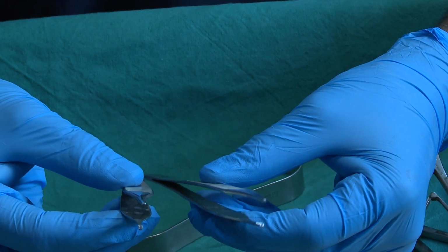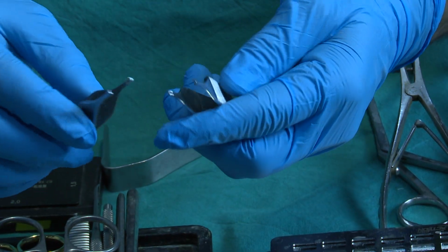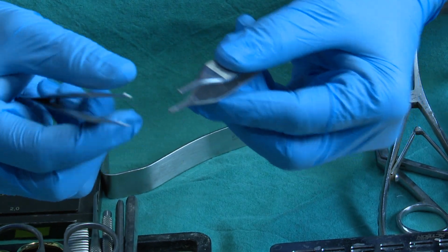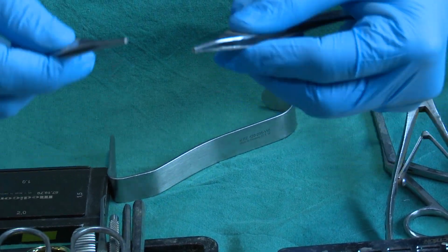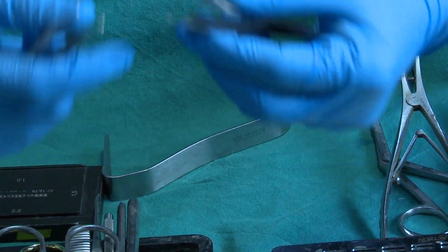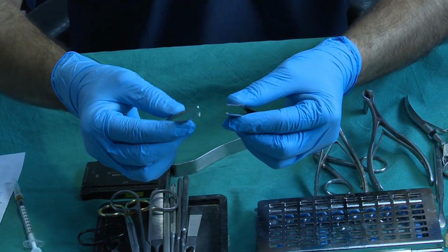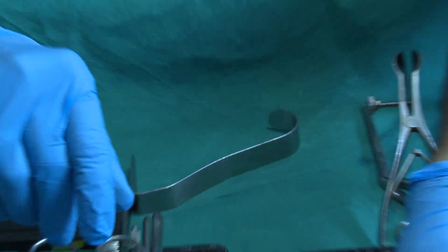You can find this also; I got it from Marina Medicals, and you find Medicon also. This is good, as they have good serrations on the top of this one. So when you hold the cartilage, they have a good grip. Otherwise, the simple Adson forceps cut the tissues. So these are the 2 cartilage holding forceps. This is a good cartilage holding forceps.